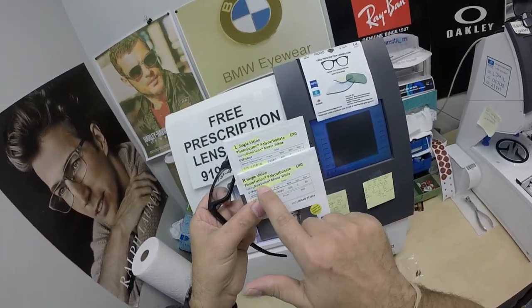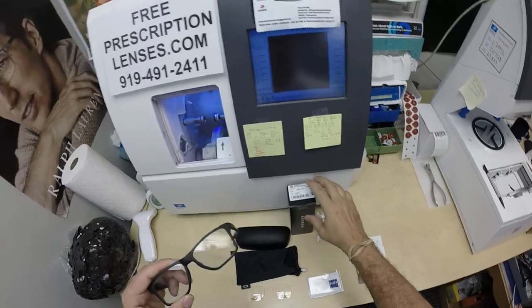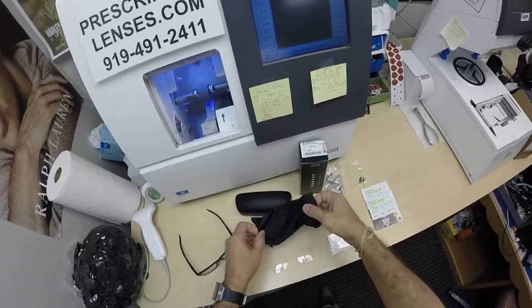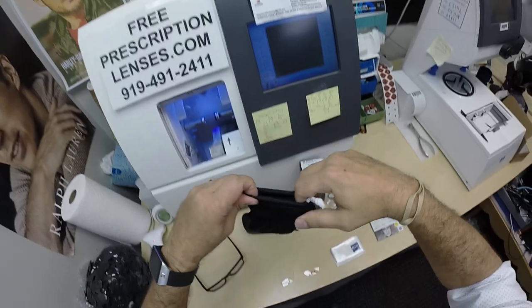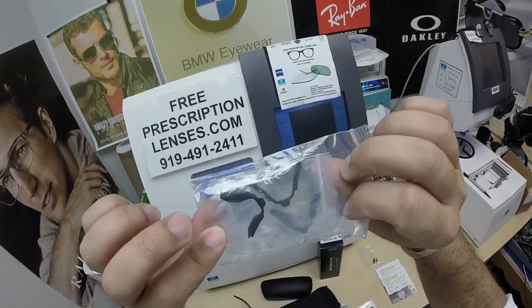You're going to get all the packaging from Zeiss — the prescription for the right eye, prescription for the left, everything highlighted on there. You're also going to get all the manufacturer's packaging from Oakley: their Oakley hard shell case, the Oakley cleaning cloth slash carrying bag if you don't want to carry around the hard case, the original demo lenses, and the Oakley Chamfered Square comes with multiple nose pads.